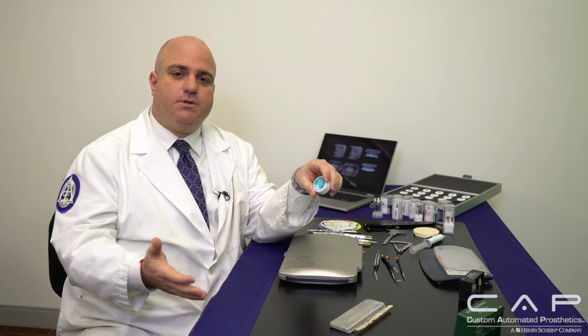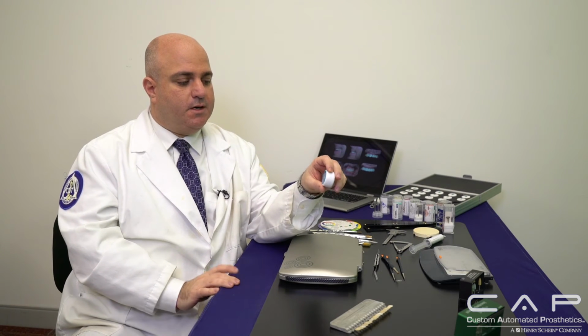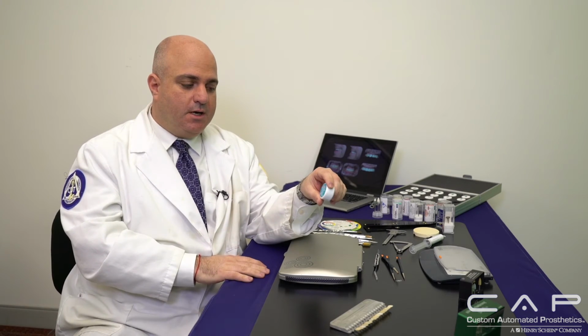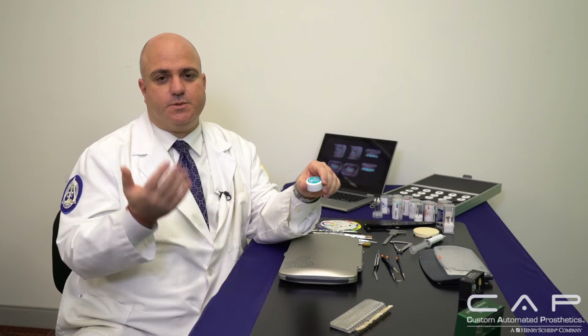Now, I always glaze slightly under a high glaze, because I want to hand polish, and there are multiple ways of doing that, which I'll discuss in a second. Depending on the shade as well as the patient's age will dictate how much shine I want. Again, keep in mind, as I said with the green state, I don't want shine throughout the crown, because that makes the crown look very artificial, specifically when it goes into the oral environment and has saliva on it, it becomes that much more glazed.